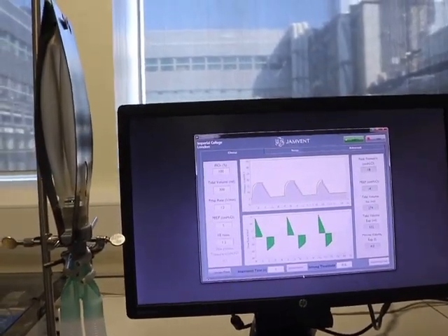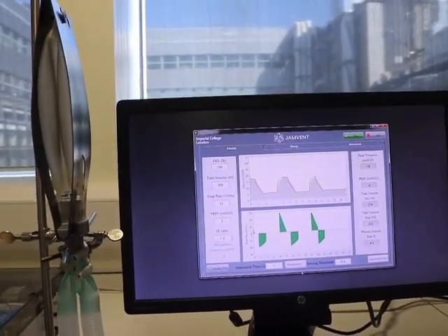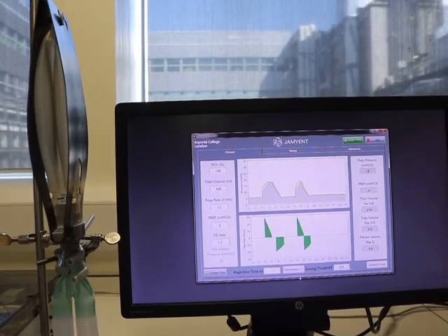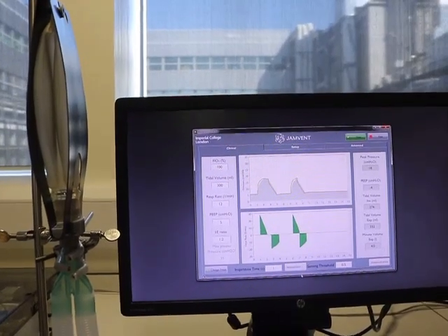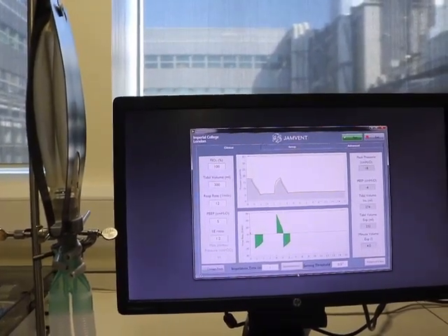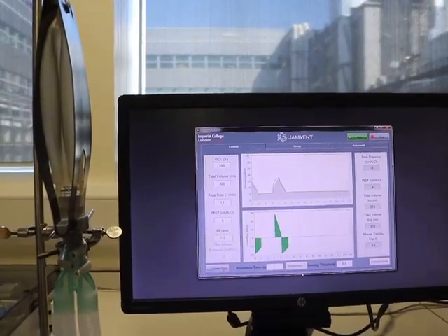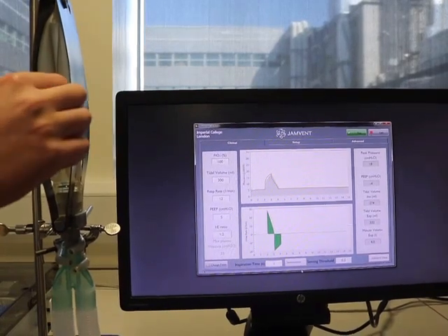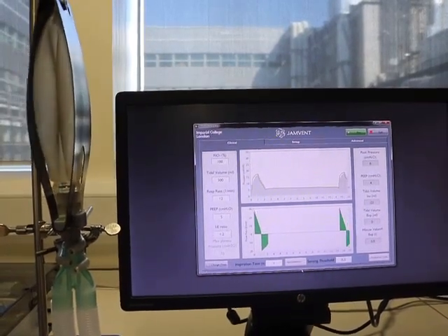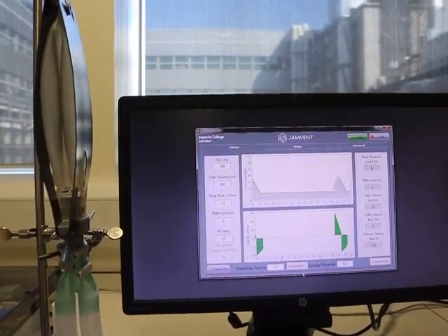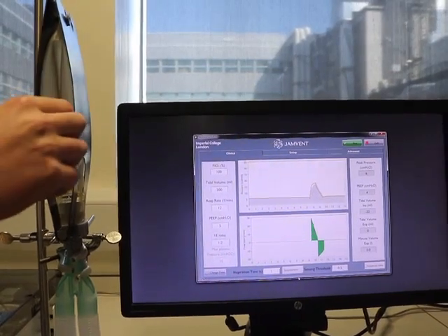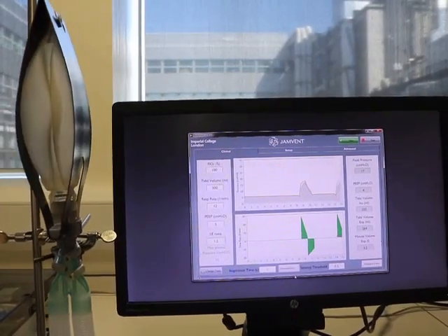Because of the sensors we use, we can actually use very sensitive pressure triggers which implies a very small flow rate. So if I just deflect the lung a tiny amount, there you can see that we're giving the patient a supportive breath. I'll do that again.